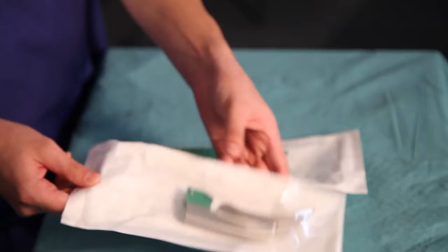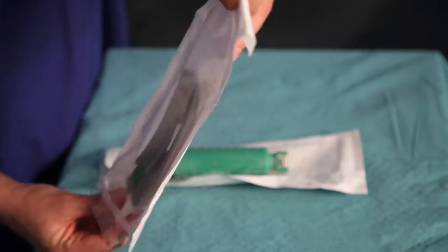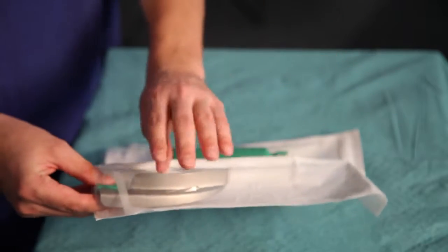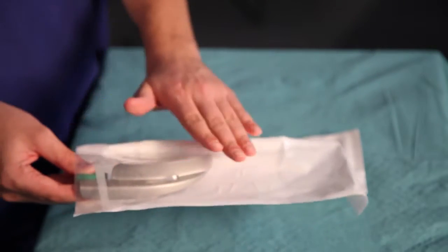Single-use blades are packed in a way that you open at one end and the blade always comes out this end. This allows you not to make any contact physically with the blade itself, reducing chances of cross-contamination.